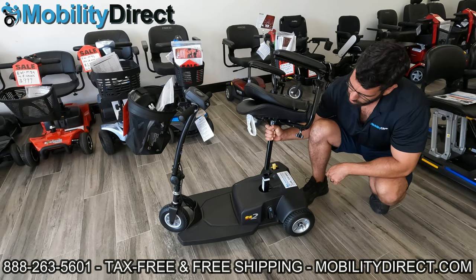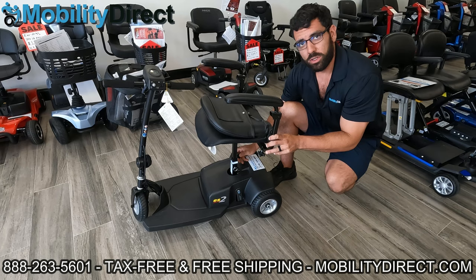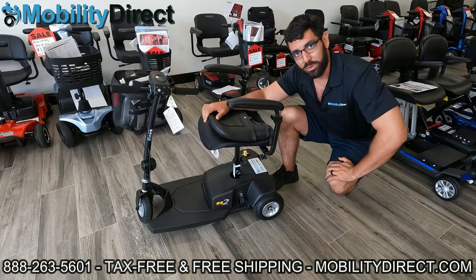On the iRide scooter — one of the older models — you can't really release the seat without a bicycle-style clamp. Seats are pretty simple overall. You can usually figure them out if you have a little experience, and hopefully this video has provided you with some.